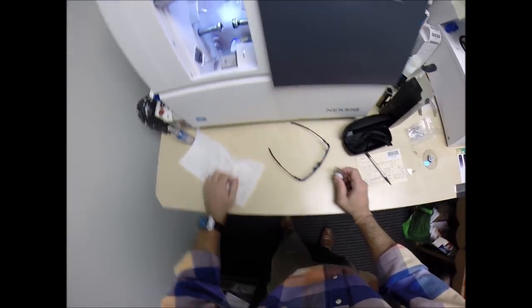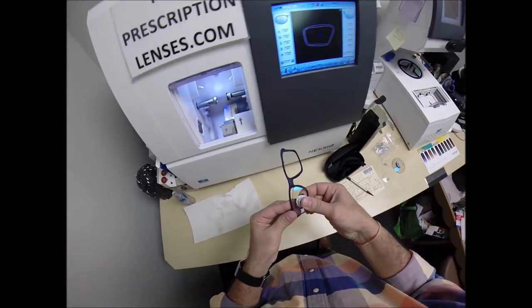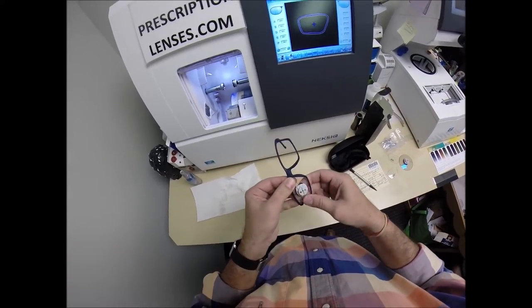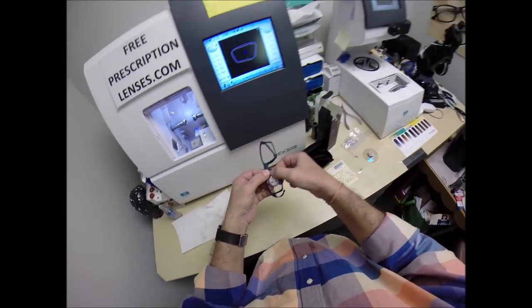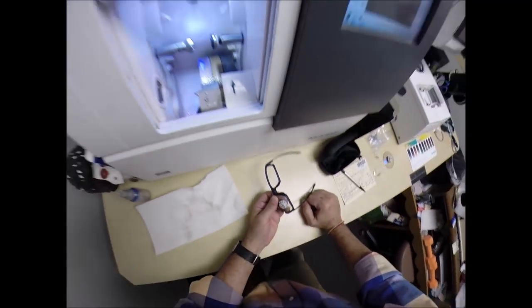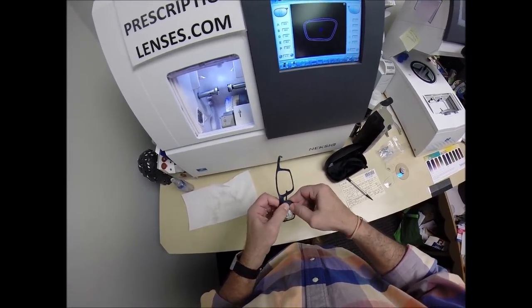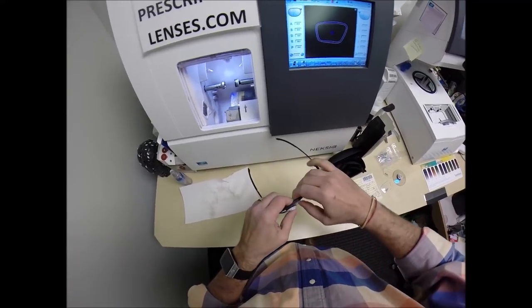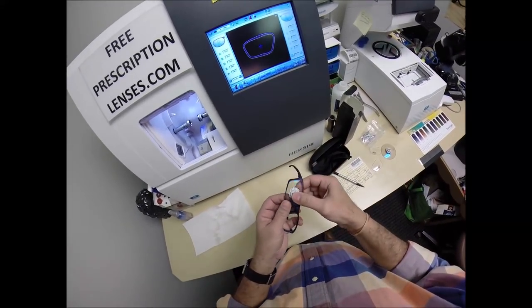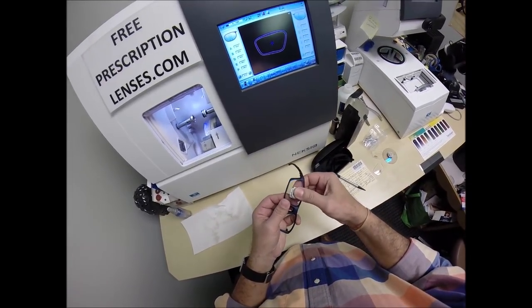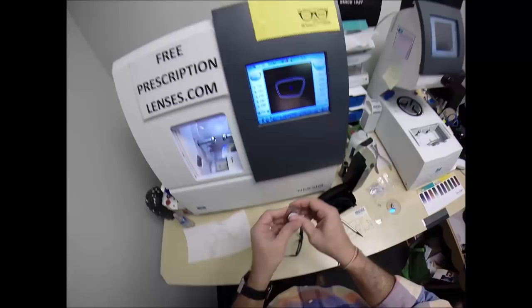This is an optical term, the cold mount. My wife tells me not to tell jokes like that because you can't see my facial expressions and I'm going to offend somebody. Use my thumbs, push down the nose. It still does not want to go in. I'm going to take it down another tenth of a millimeter.